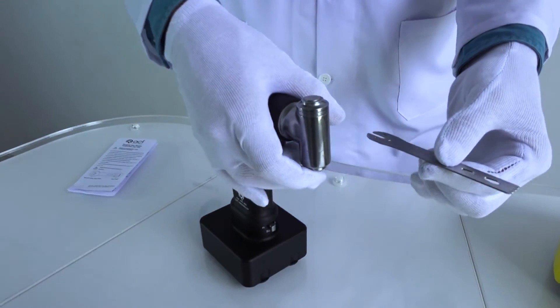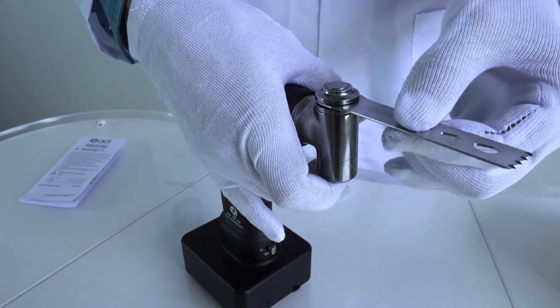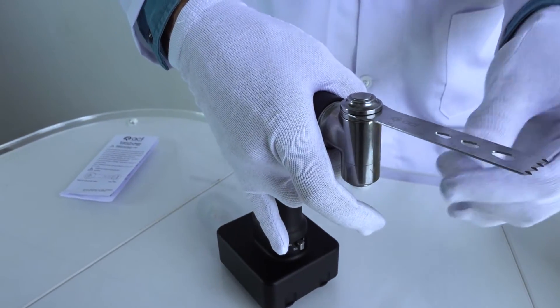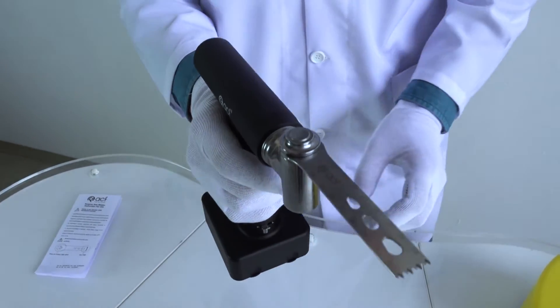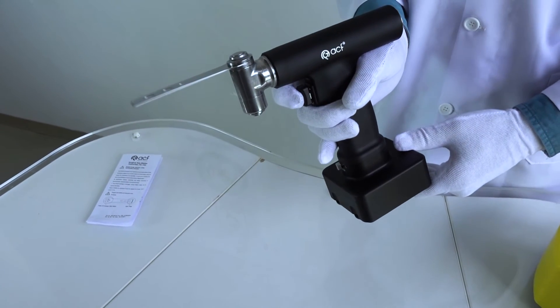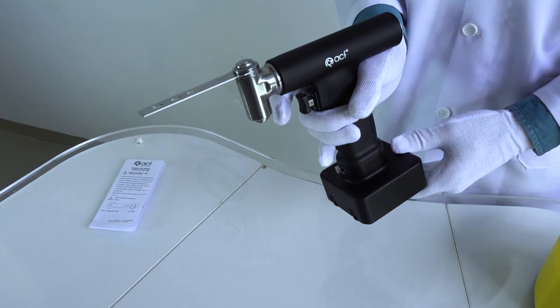Ensure that the saw blade is securely attached to the tool. From 0 to 15,000 CPM, it is ensured with variable trigger speed control. When the surgical operation is finished, the battery should be stored out of the handpiece.